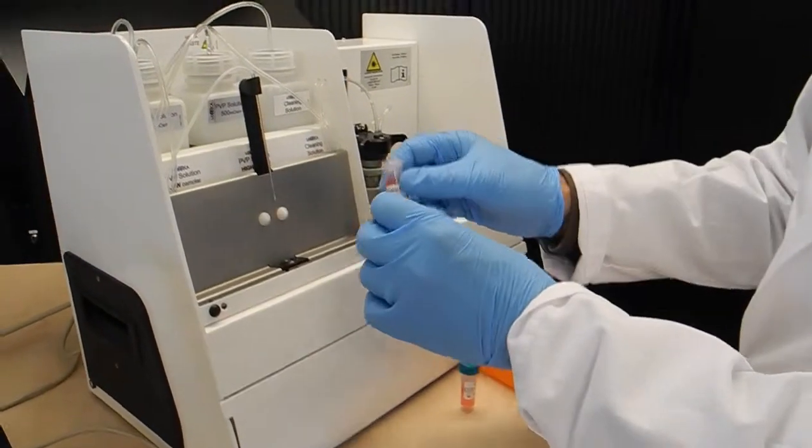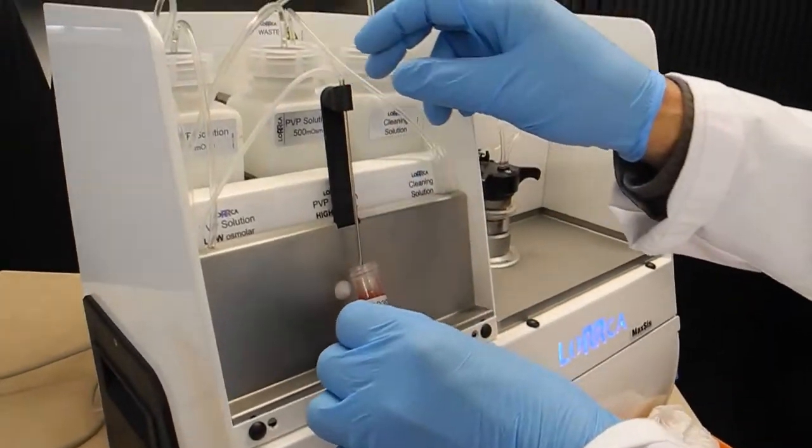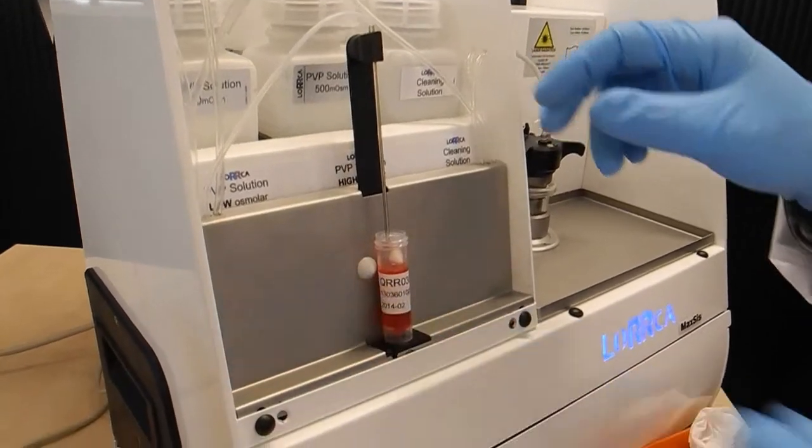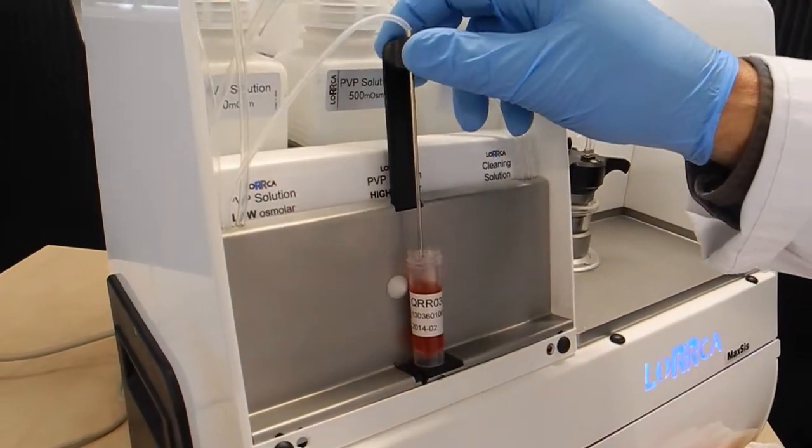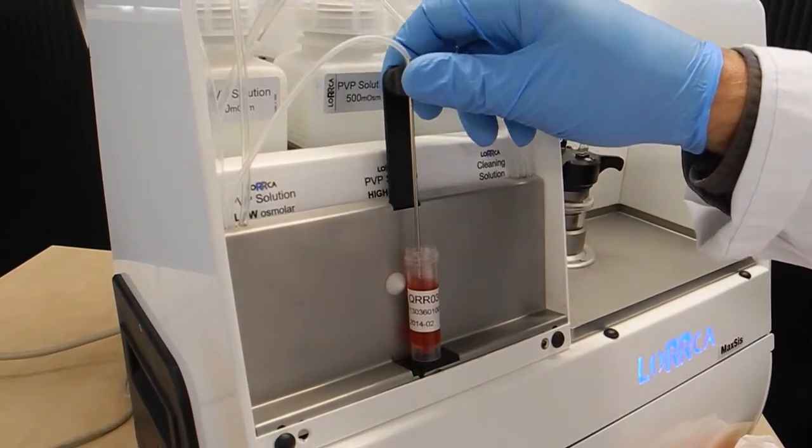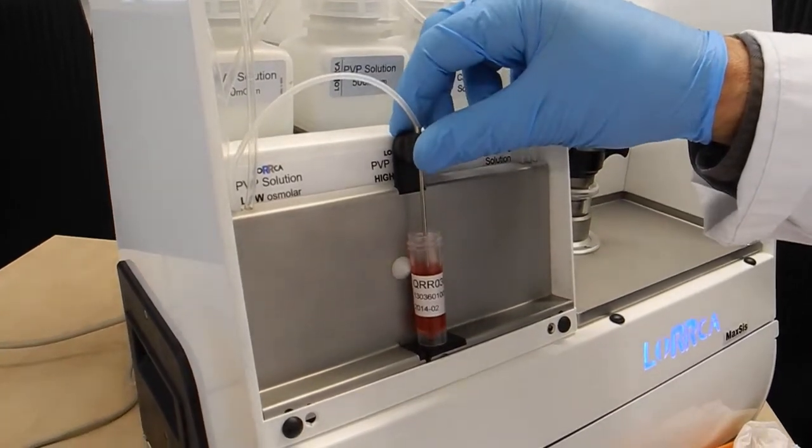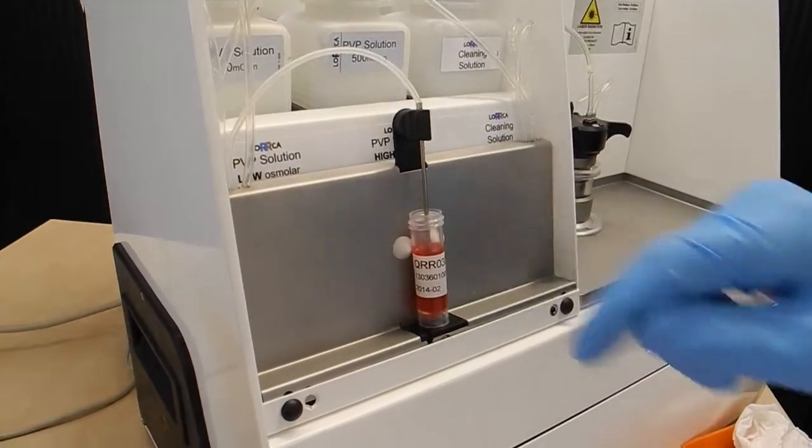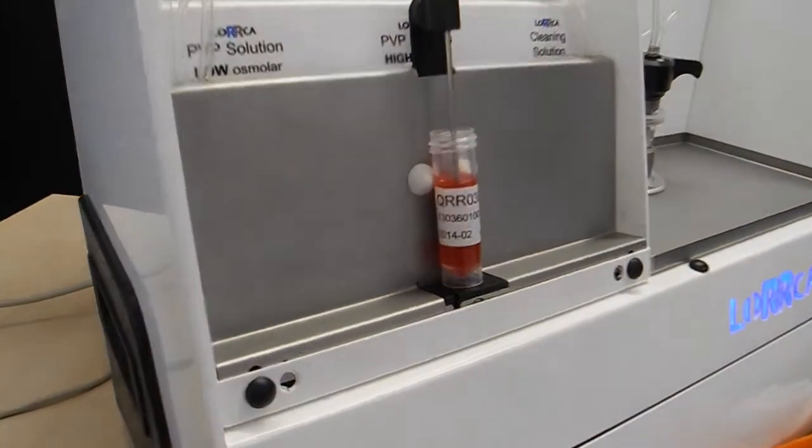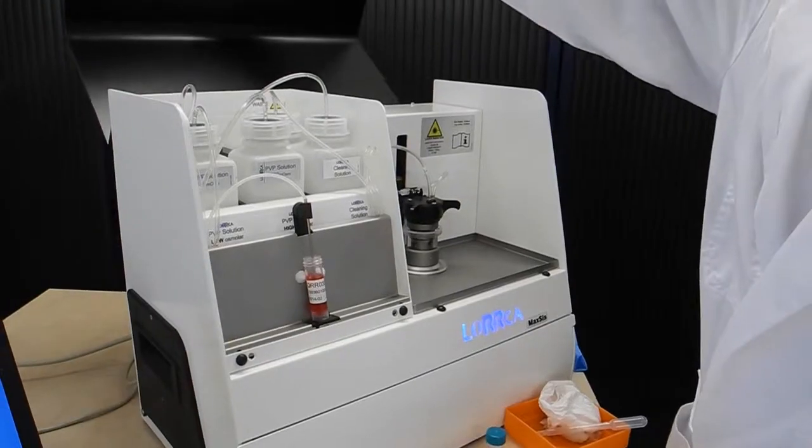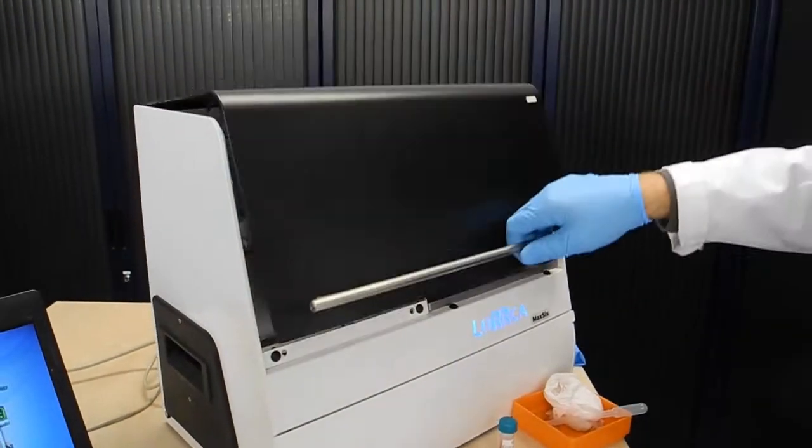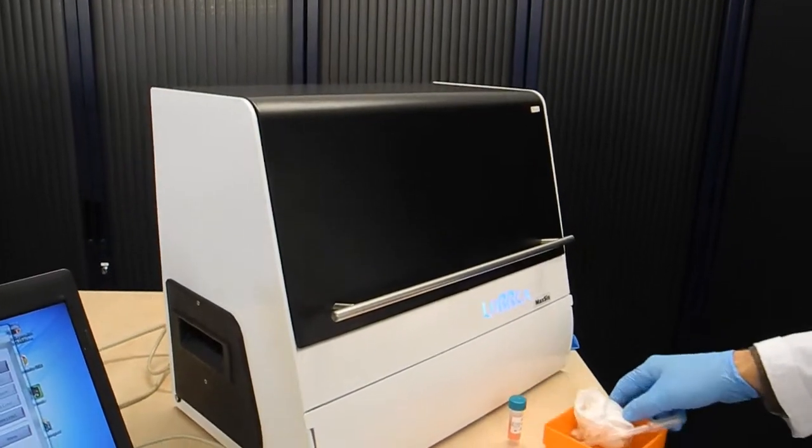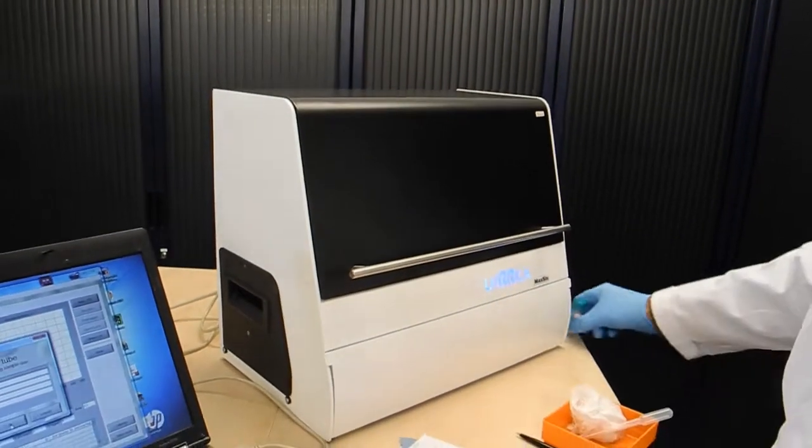The test sample must be placed under the needle and the needle lowered so it touches the bottom of the sample. Close the lid, and for this test it's easiest to open the pump drawer.